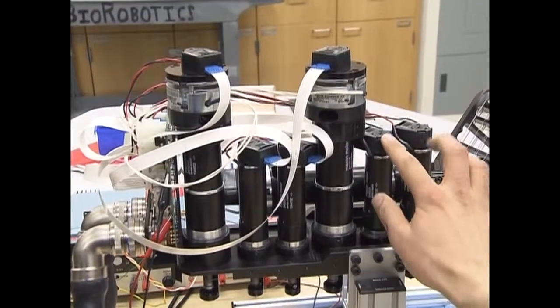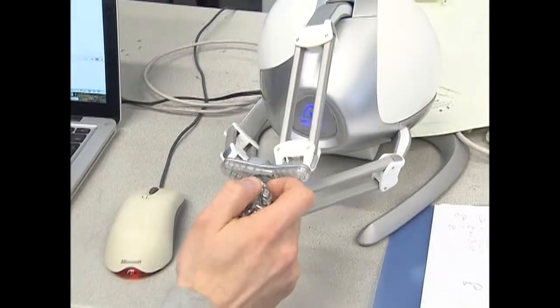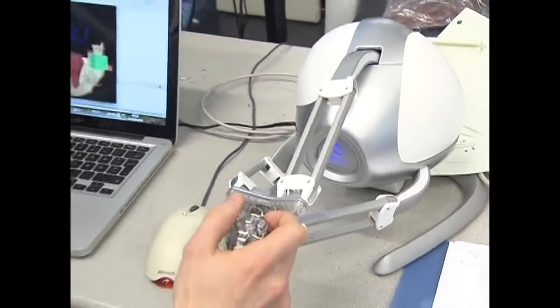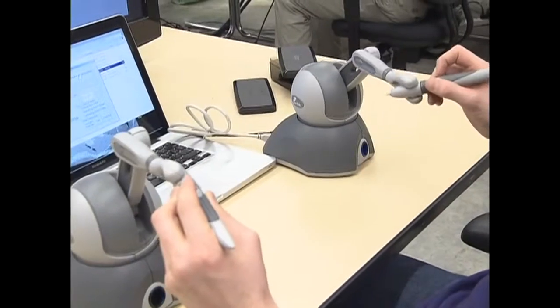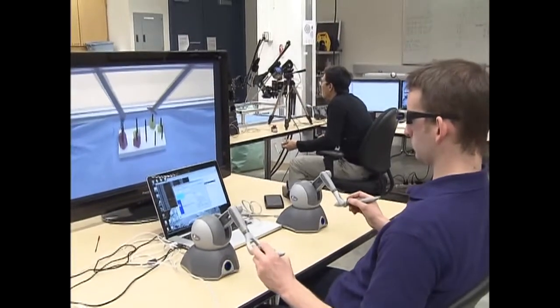On top of each motor, there's a sensor here. The National Science Foundation funded us to build seven systems that can be put into labs at seven universities that are all already doing research on advanced surgical robotics.